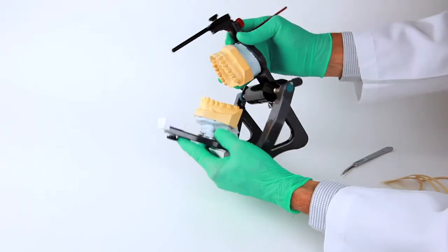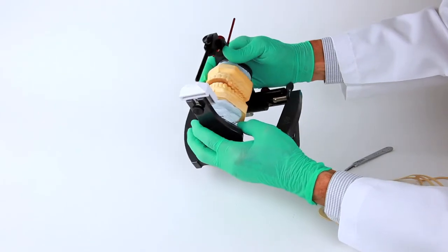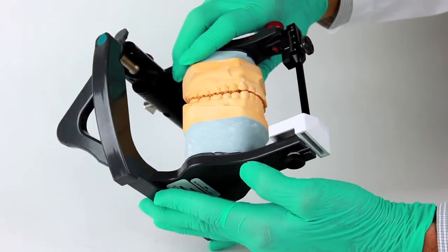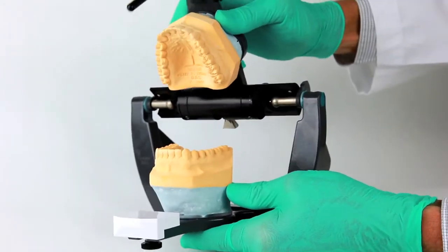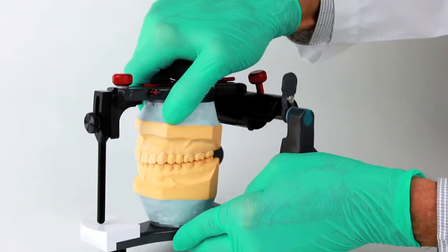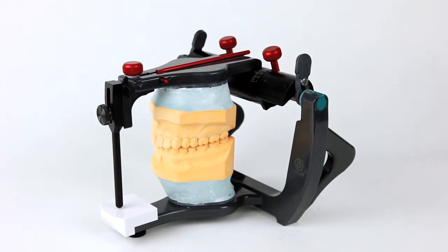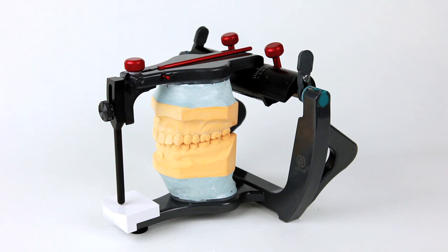This is a good time to confirm that you have appropriate articulation, and now that you are ready to add a second layer of mounting stone to obtain adequate strength and a neat finish to the cast mounting. By following these safe and simple steps, mounting errors and the need for remounting of casts should be rare, making this a very efficient process.